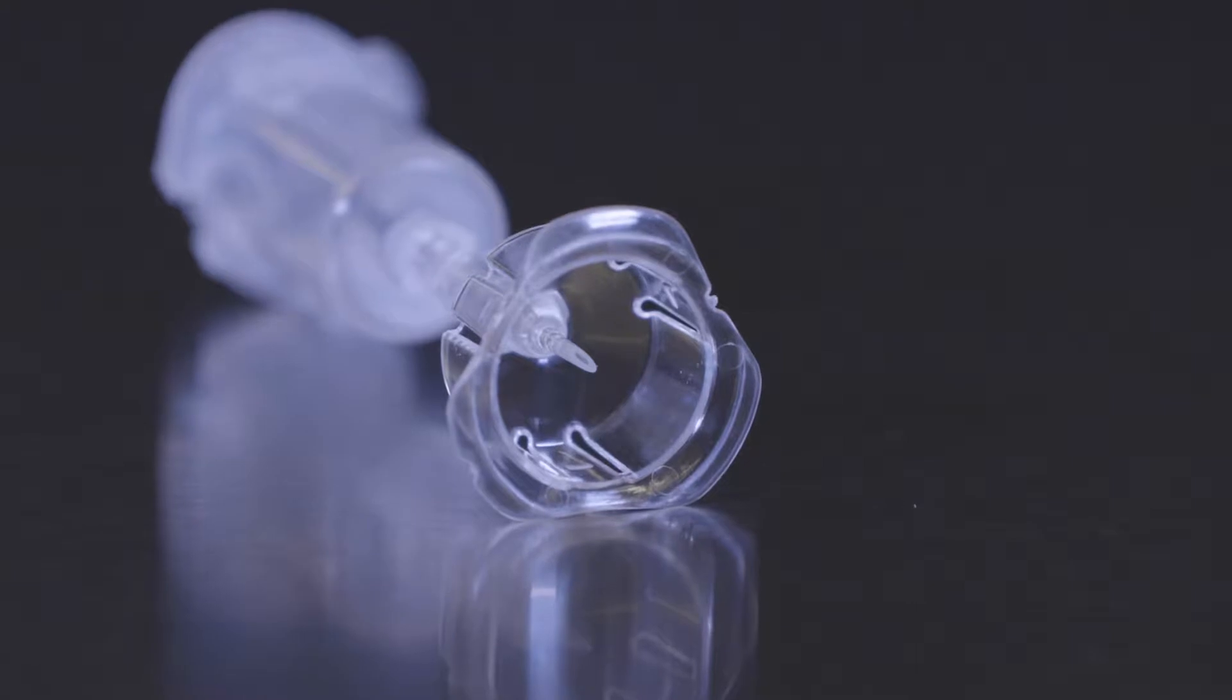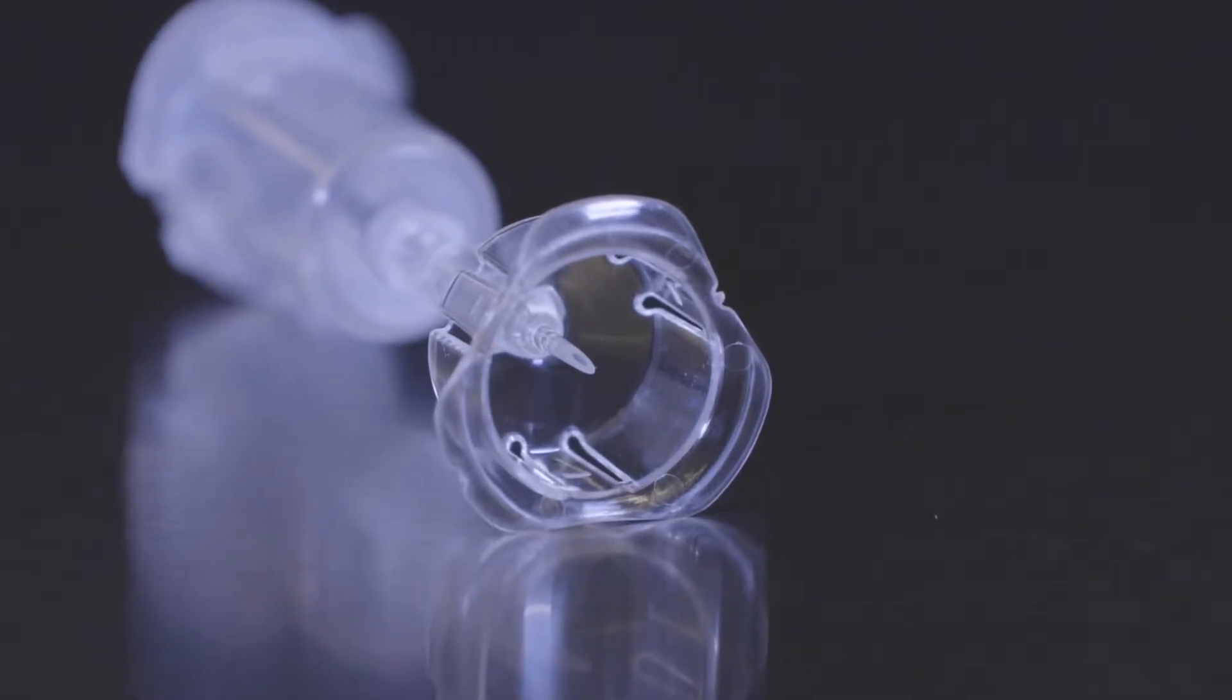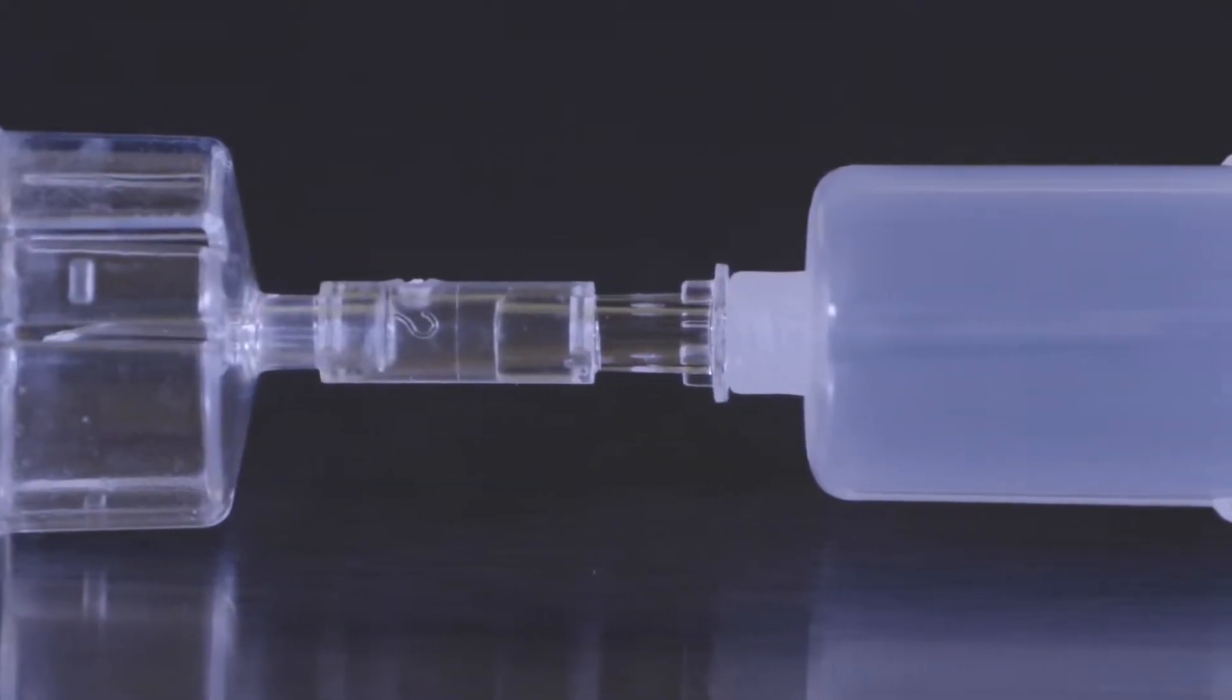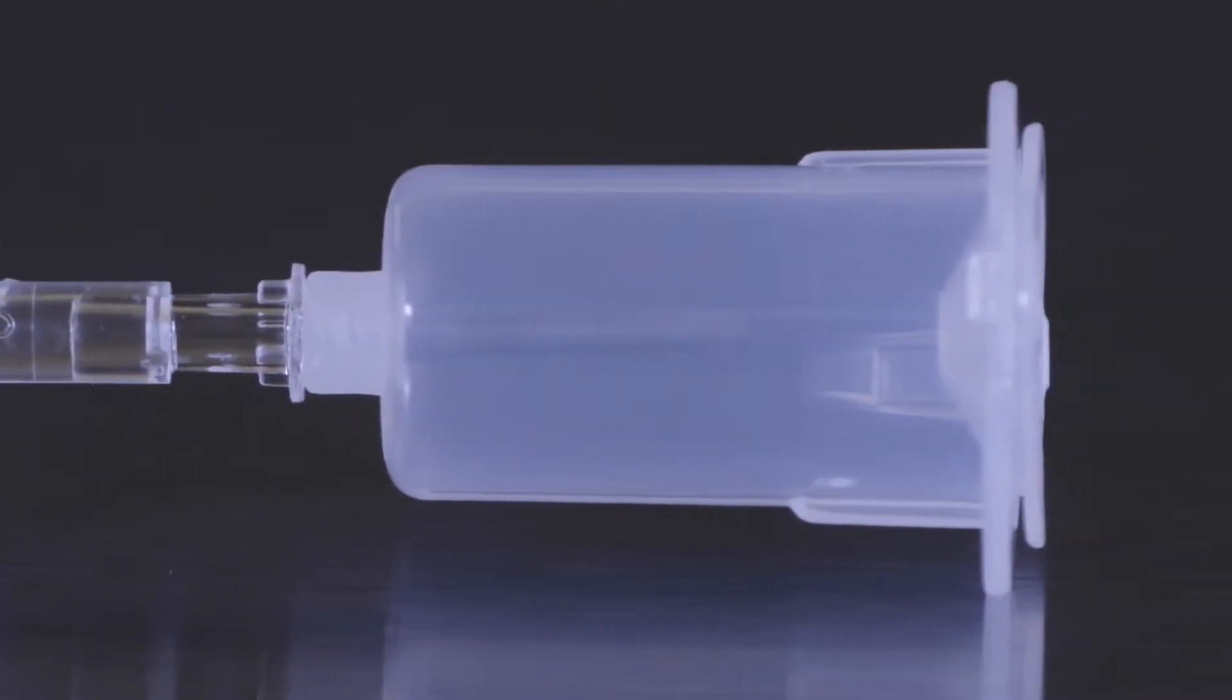Transfer capset consists of a small cap with a recessed plastic piercing tip on one end that pierces the culture bottle. On the other end, there is a tube holder with safety lid for inserting vacuum tubes.